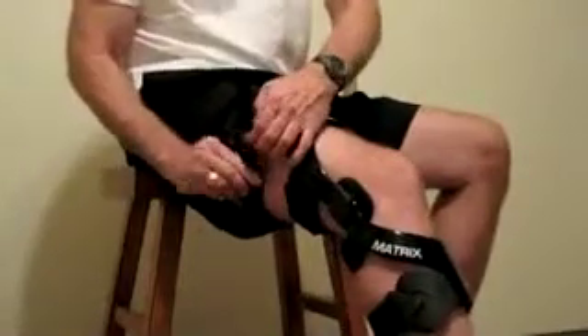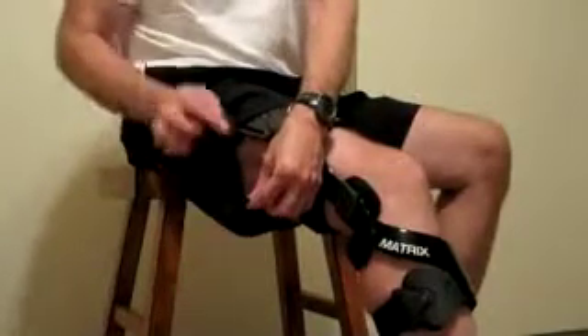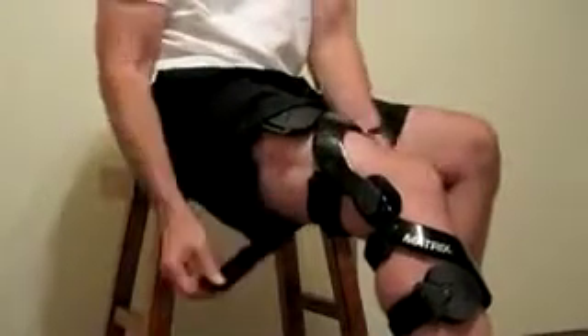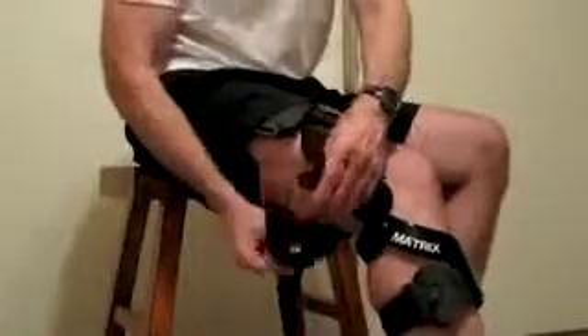As the Velcro is detached and brought out of the buckle, the best thing is to take the Velcro tab — the hook — and fold it right back onto the loop each time, to avoid the straps from becoming entangled with one another.